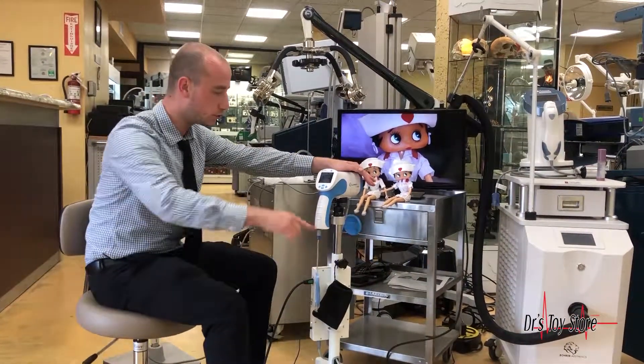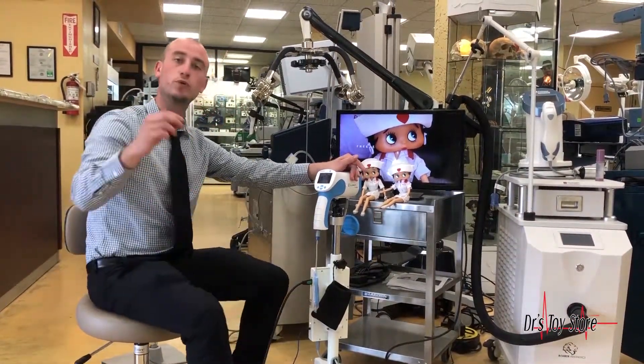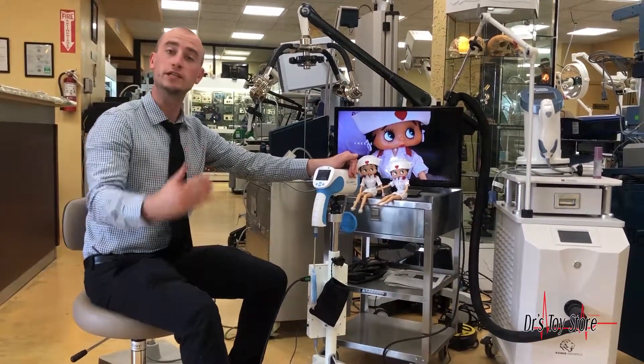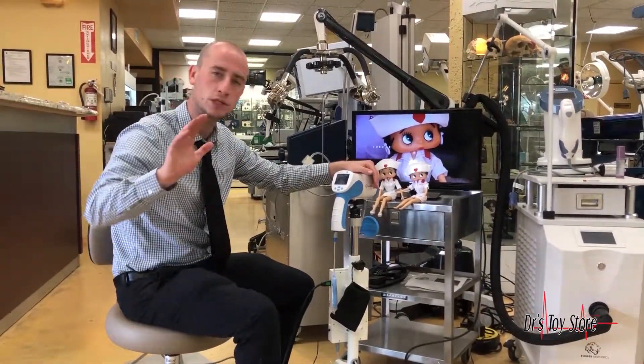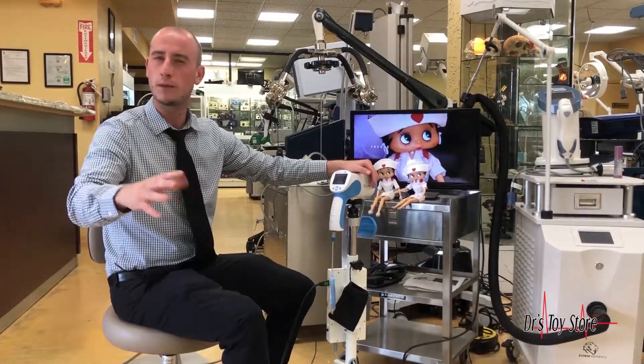You can document what you're looking at, you can freeze the picture, you can record and then transmit to a computer and then transmit to the EMR. That way you bypass all DICOM problems.